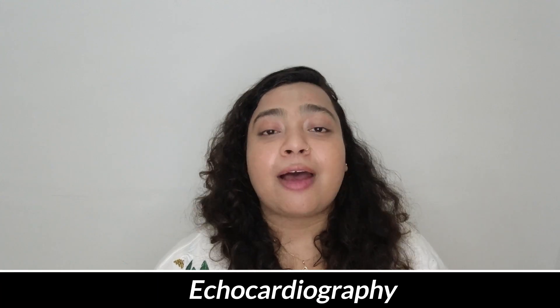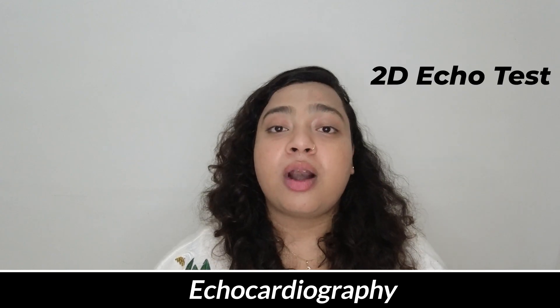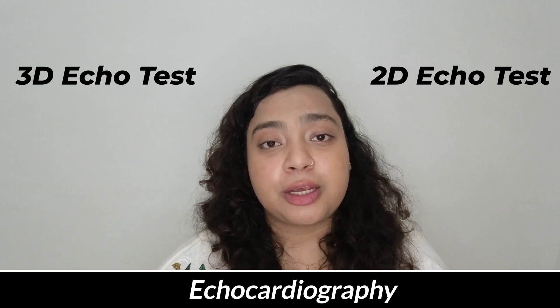Before understanding the differences between the two tests, let us understand what is an echo test and what is a stress test, and how it is done. Echo test is basically known as echocardiography. Nowadays, we have 2D echocardiography or 3D echocardiography. It is a very useful imaging method because of its ease of access and availability. Most of the time it is painless and there are no risks associated with it.